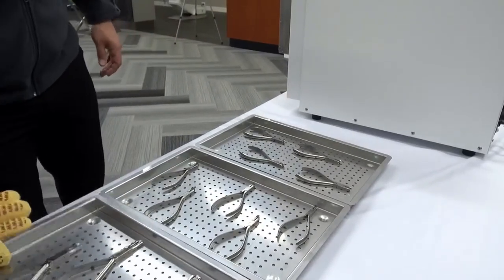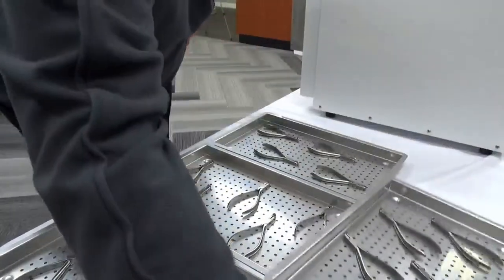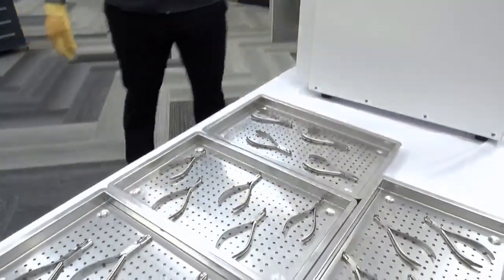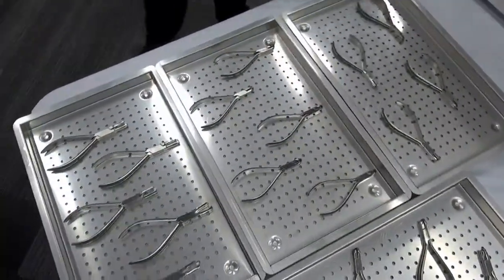Going into the maintenance for the unit — it is an extremely low maintenance unit. Since there is no water, there's no corrosion and no issues. The only thing you would probably replace within the first five years would be the gasket, which is available through Arminco. We also have a full service team to come into your office to help you service it should anything come up.